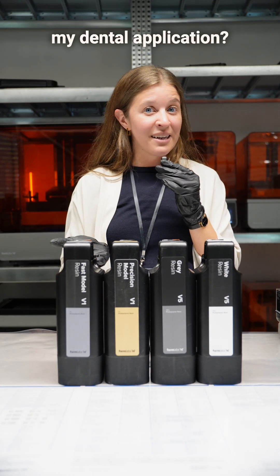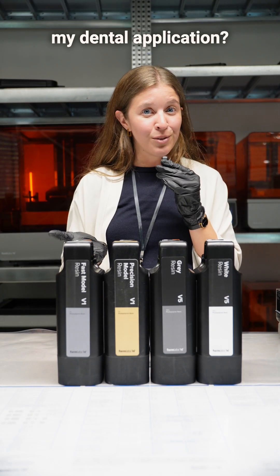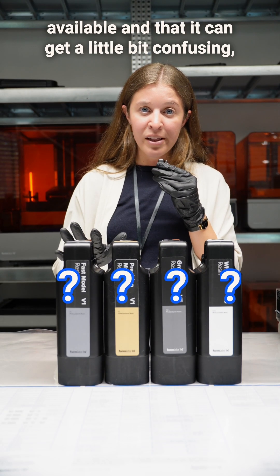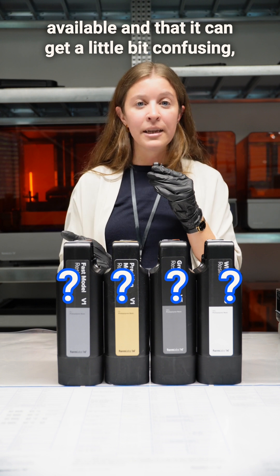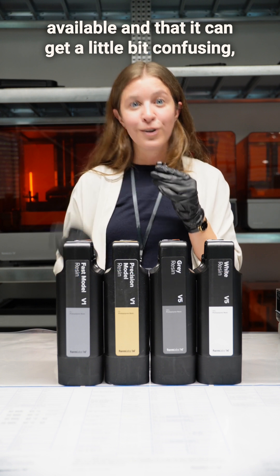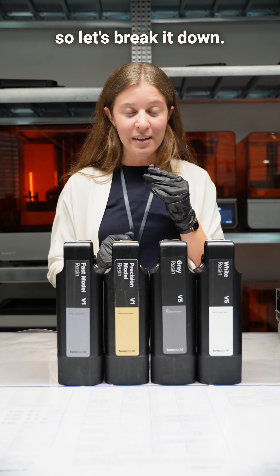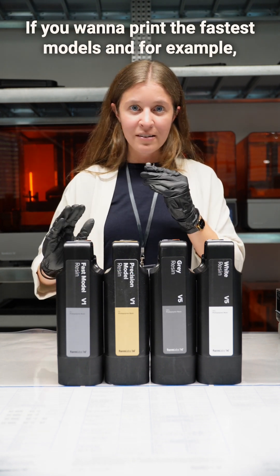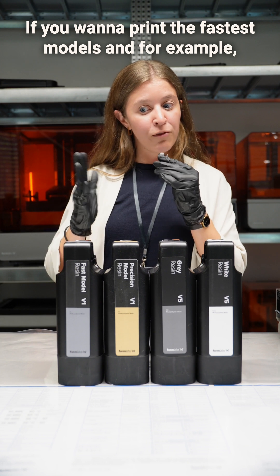Which model resin should I choose for my dental application? We know that there are different options available and that it can get a little bit confusing, so let's break it down.